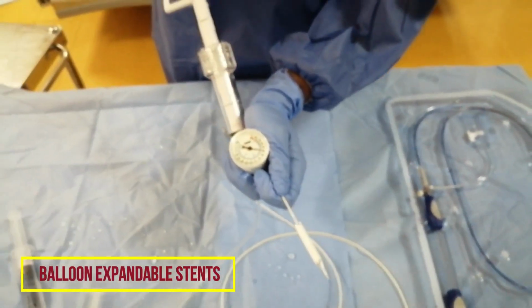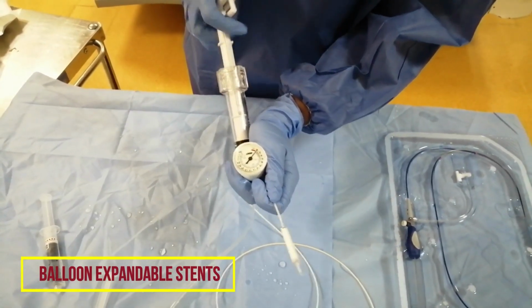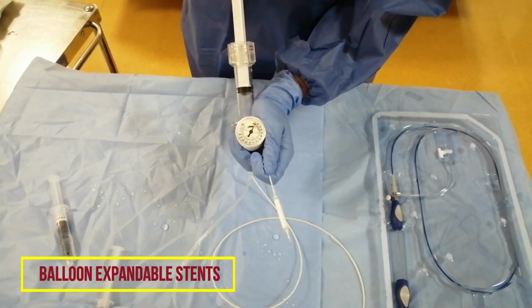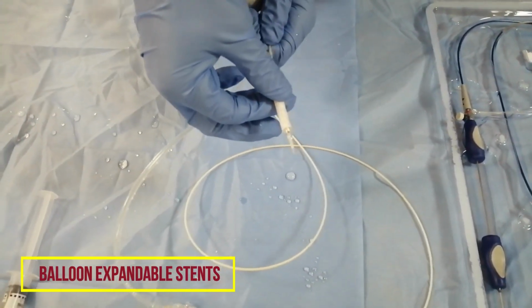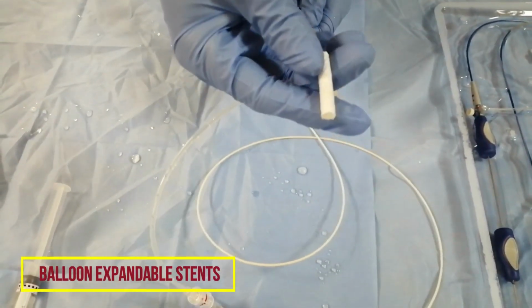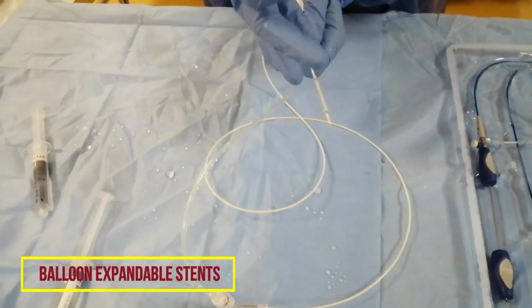After 30 seconds, the physician will ask you to deflate the device. Now you deflate the device completely. Now the stent will be deployed in the blood vessel. This is the mechanism of how we use it. Here we can see that the stent is free to come out. If it is inside the blood vessel, it stays inside the blood vessel. We can remove the balloon. This is the usage of balloon expandable stents.